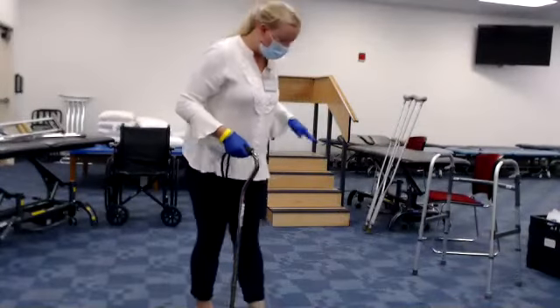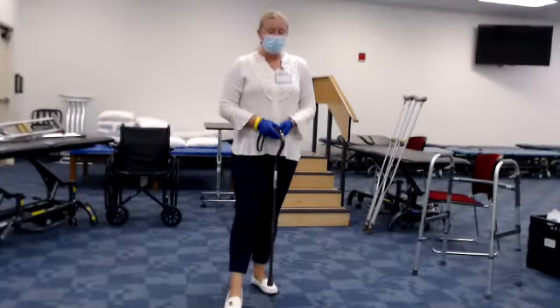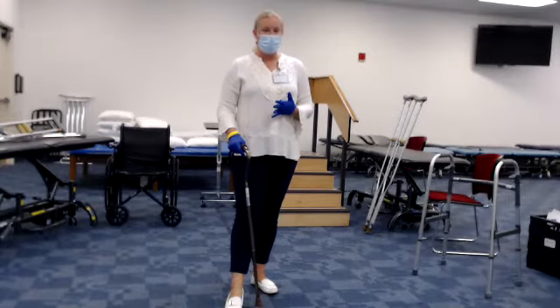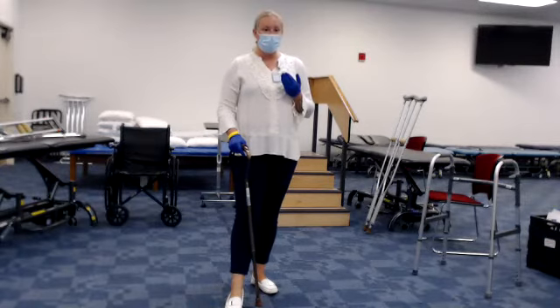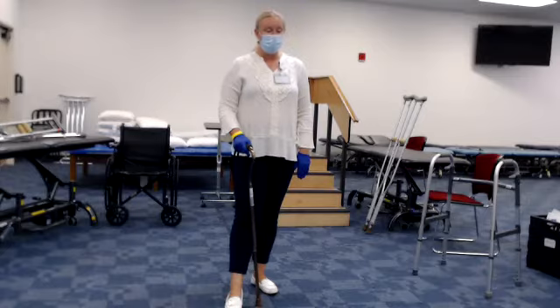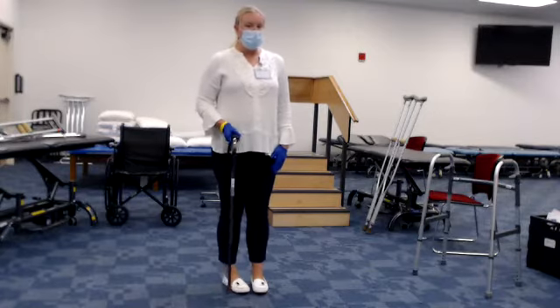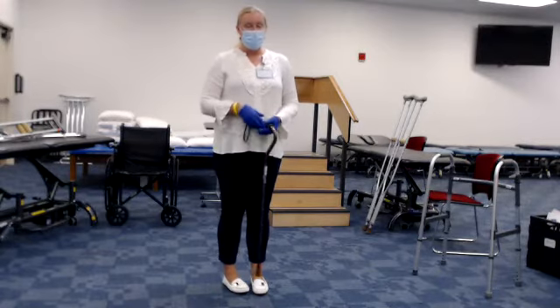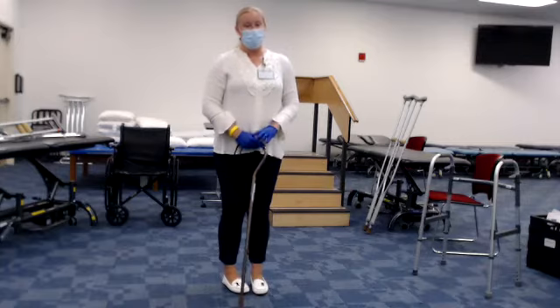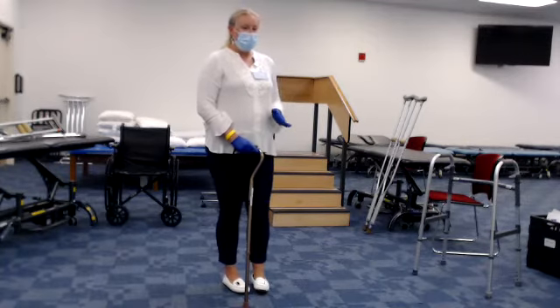What I wanted to review with you is the stairs. We have two acronyms that will be helpful: GAS when you're ascending the stairs, and SAG when you're descending. GAS stands for Good, Affected, and Sticks or device. SAG stands for Sticks or device, Affected, and Good.